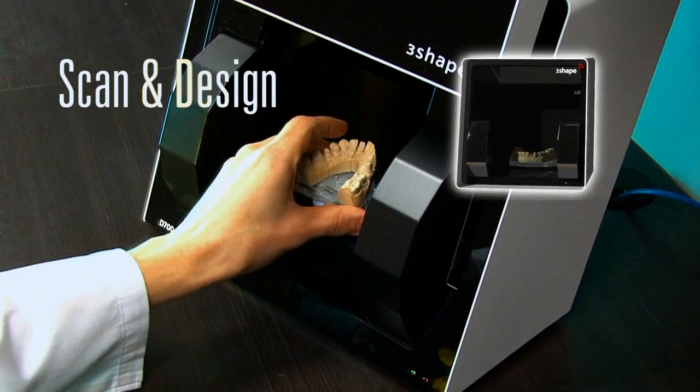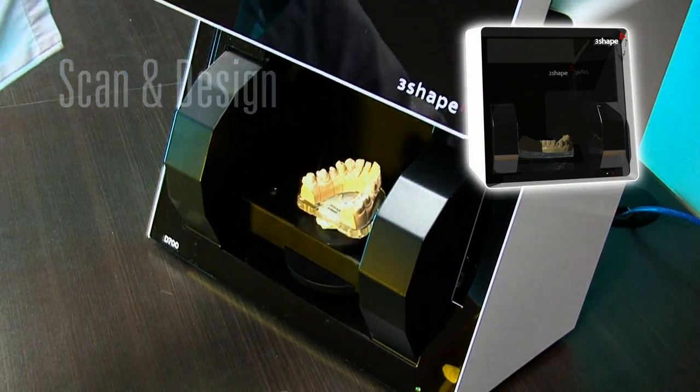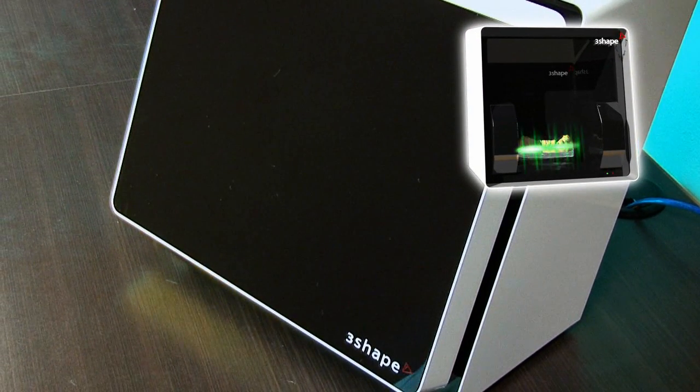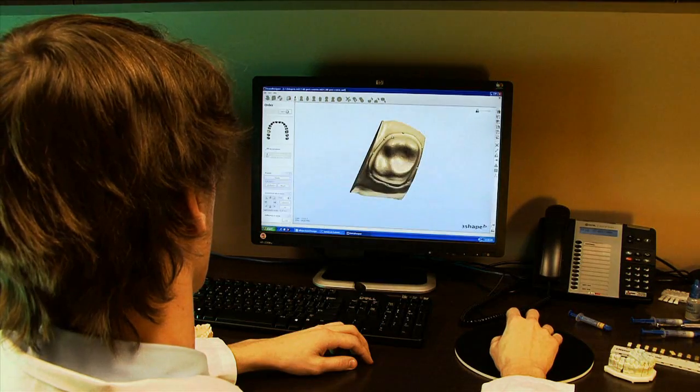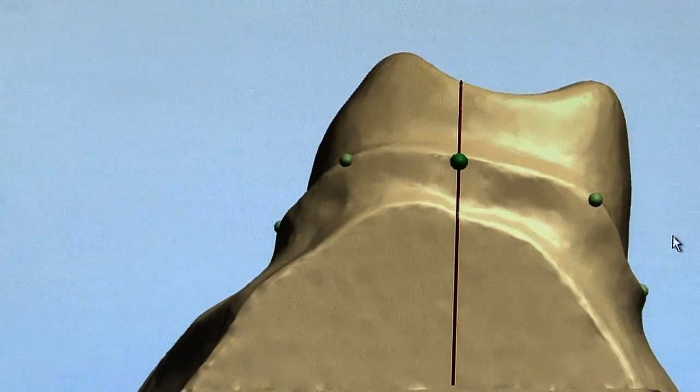Whether your lab receives data files from an impression device, scans an impression, or scans a model, Diadem will team up with your staff to help you become an expert in digital design.